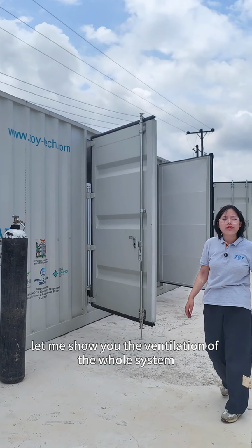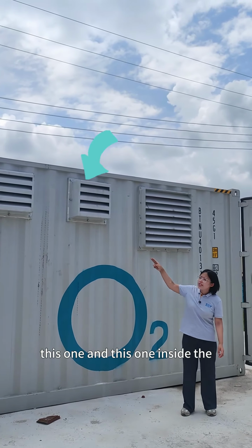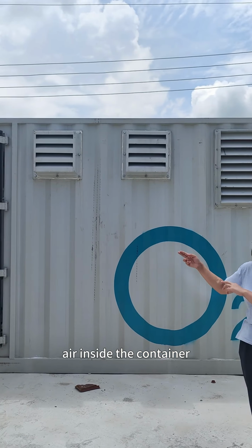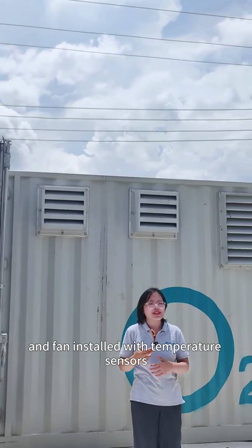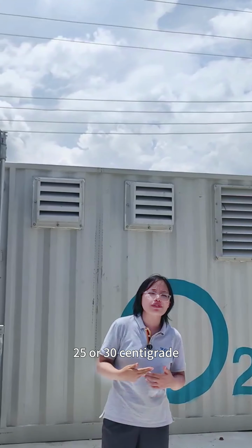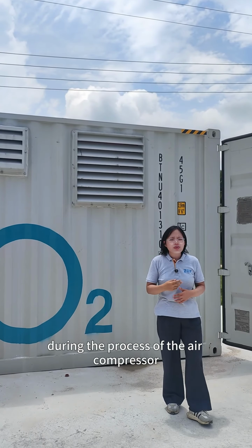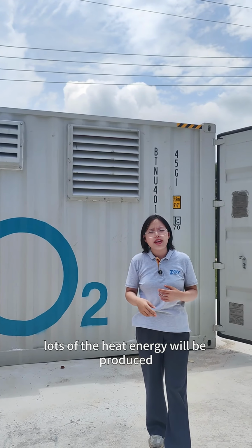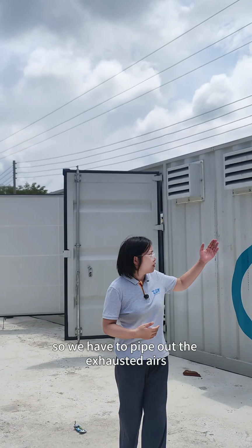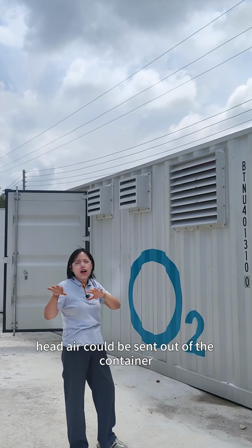And coming this way, let me show you the ventilation of the whole system. Here has 3 windows. This one and this one are built in with a fan. The fan helps to take out the air inside the container. And the fan is installed with temperature sensors, so it will automatically start to work when the environment temperature is higher than 25 or 30 centigrade. And this is the exhaust duct of the air compressor. During the process of the air compressor, lots of heat energy would be produced, so we have to pipe out the exhausted air. Through this exhaust air duct, hot air can be sent out of the container.